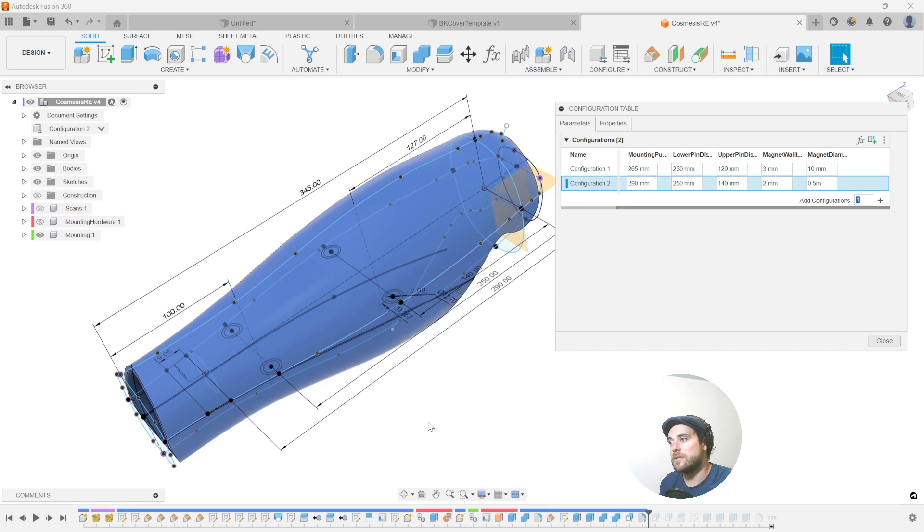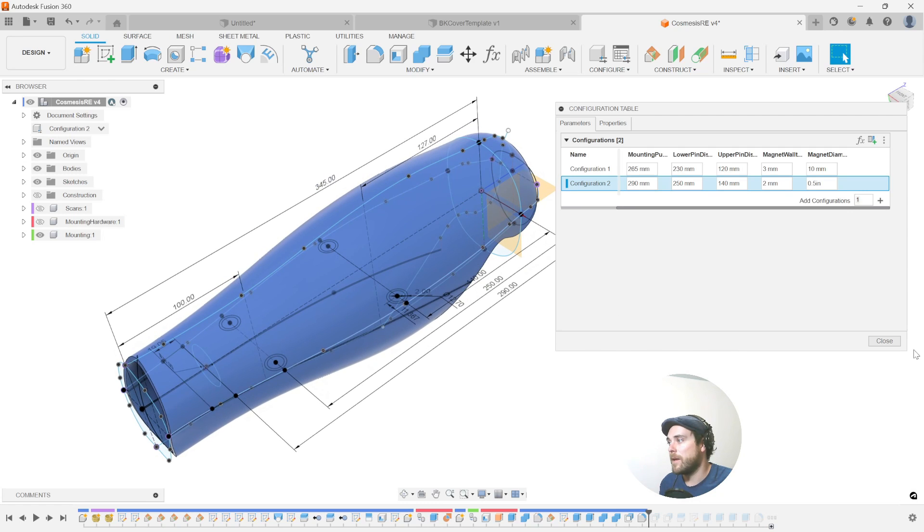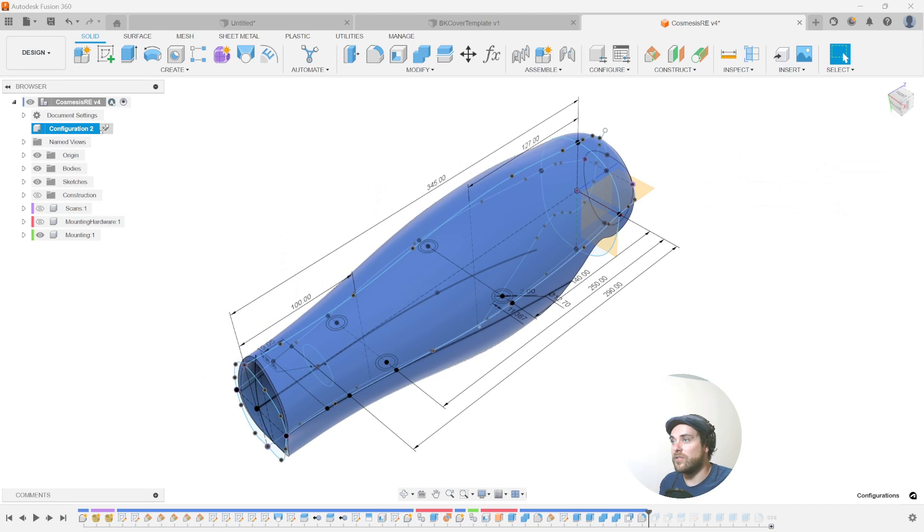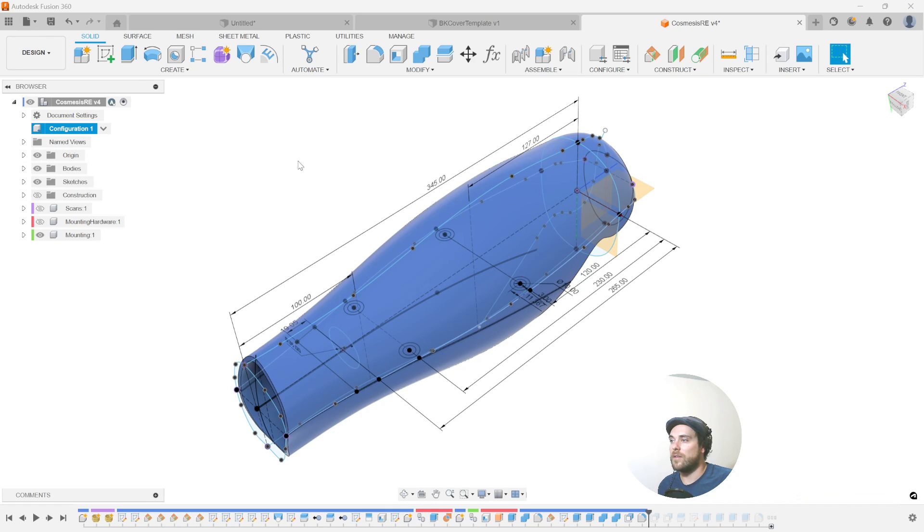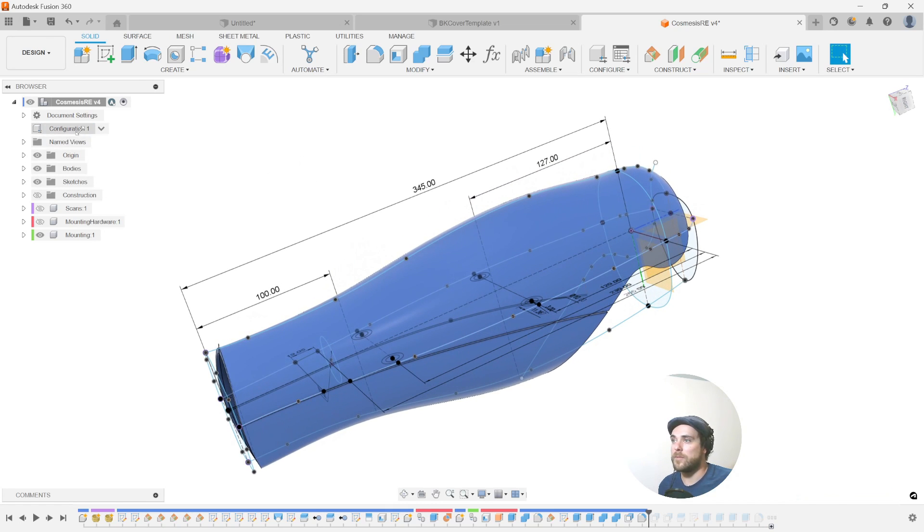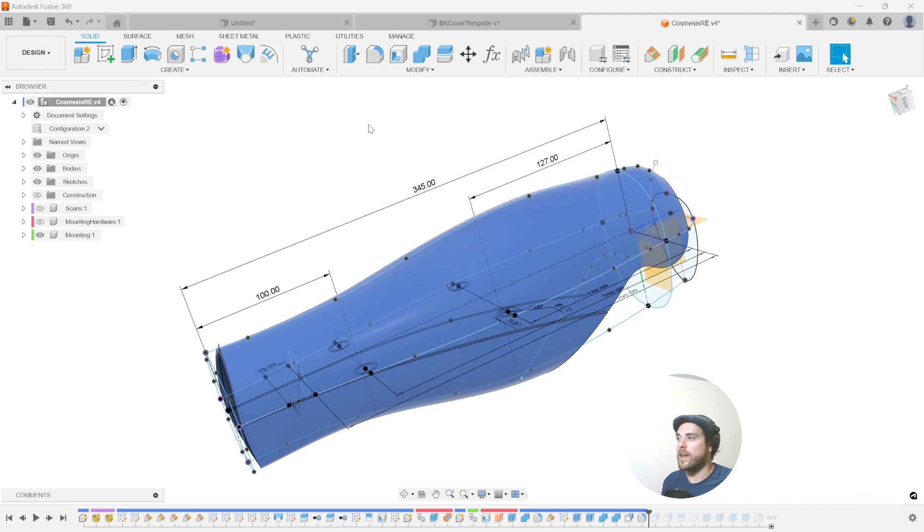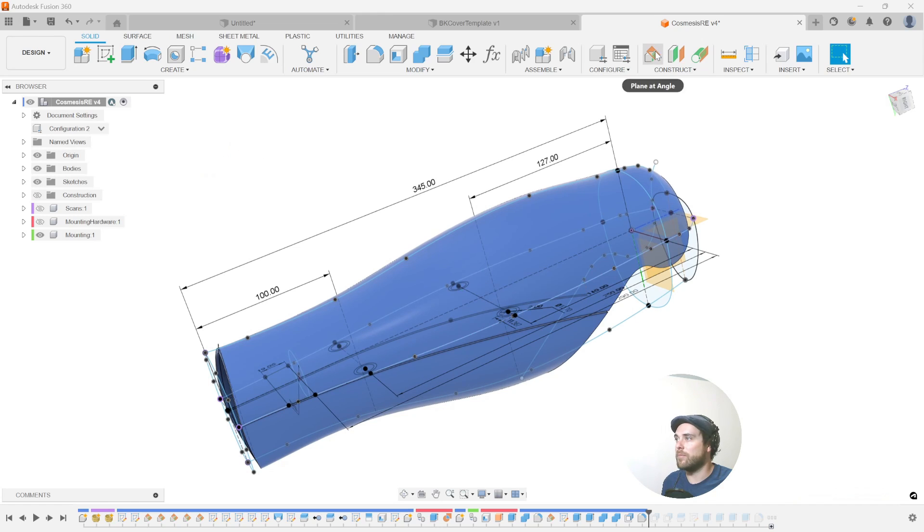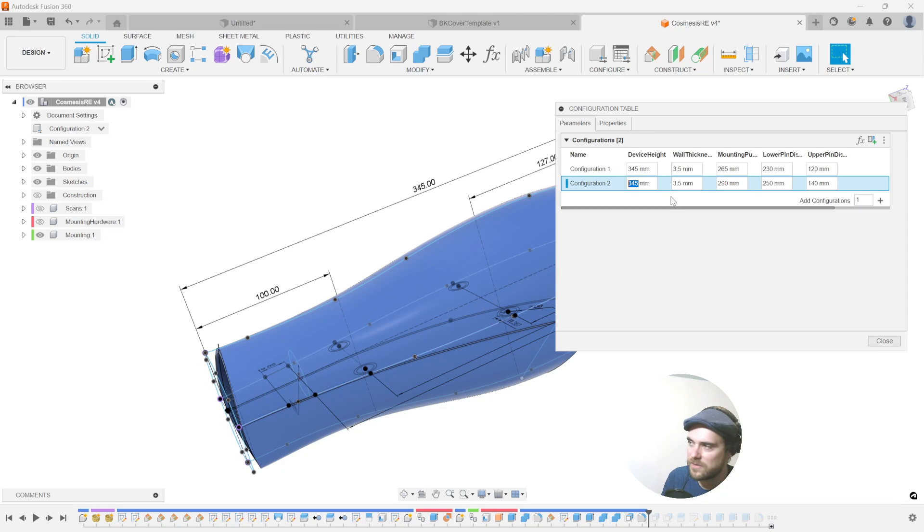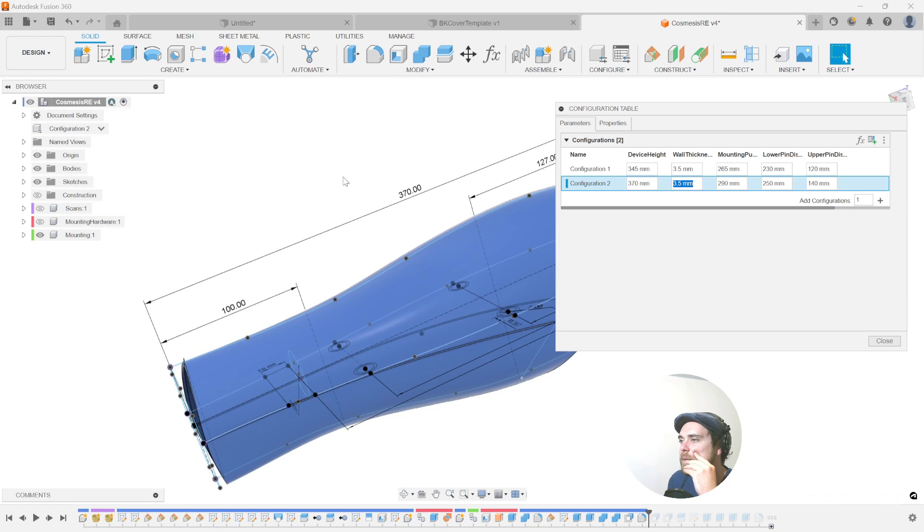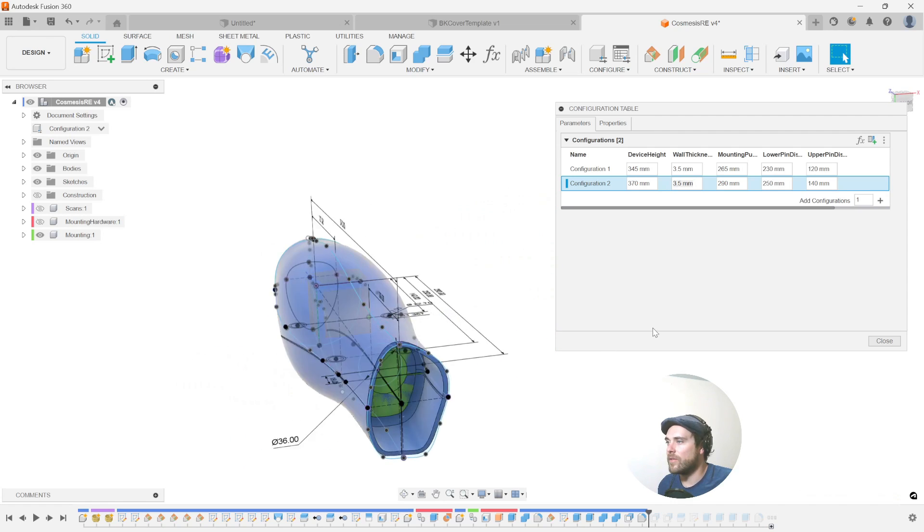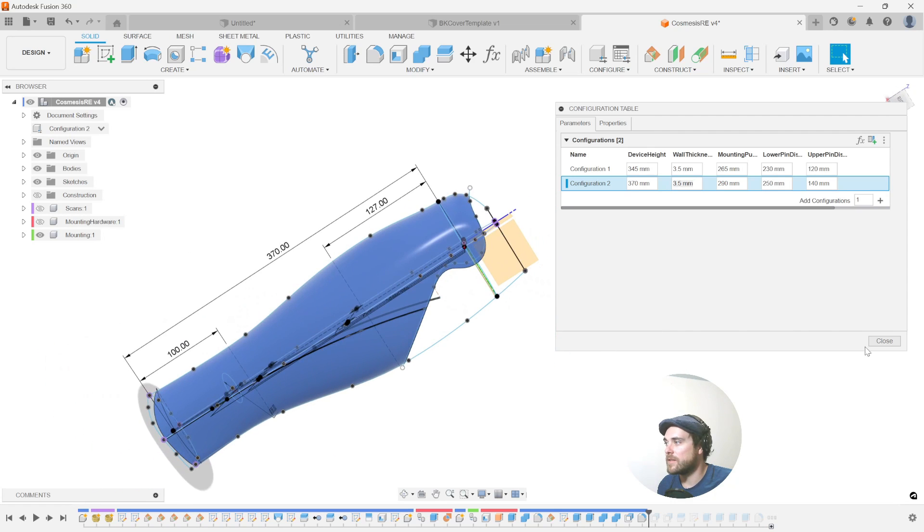And so there we go. So this is an imperial version of a larger cover as a configuration. So we have now configuration two and then configuration one inside the same file. And we can call upon these configurations inside of other assemblies, which is really interesting. So it's kind of like a version. It's kind of like a save as a new file. But it's not quite that. It's all taking place inside of the existing file itself. I forgot to add the height here. Let's try 370. Let's make it a little taller. Unless that failed and I totally missed that. There we go. Perfect. So there's your final version for this design.